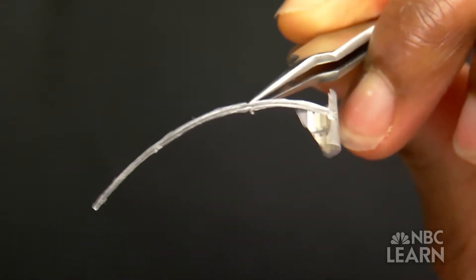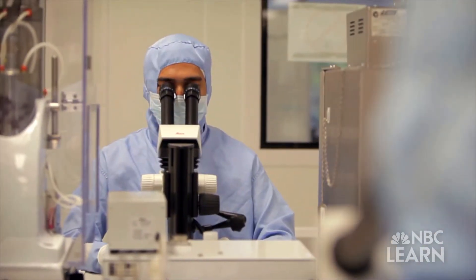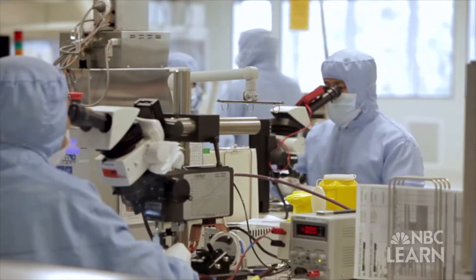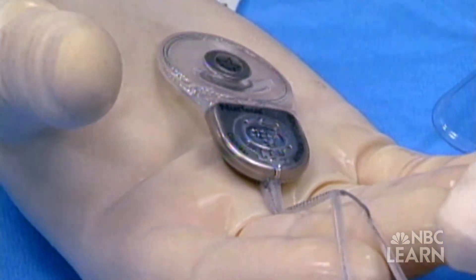But despite some advances, the microscopic circuitry in the electrode arrays is still manufactured by hand, a complex and time-consuming process that makes the devices expensive and inaccessible for many patients.